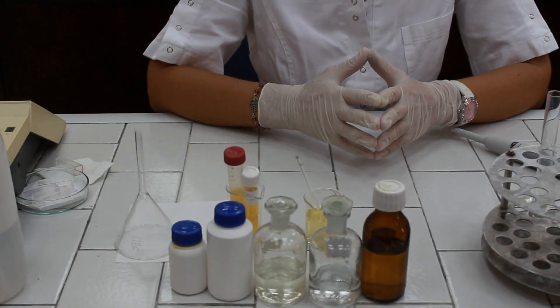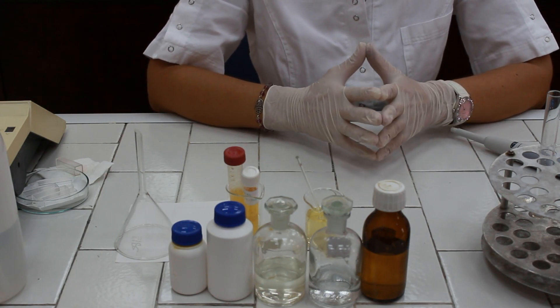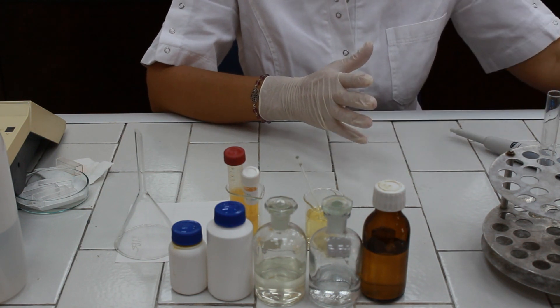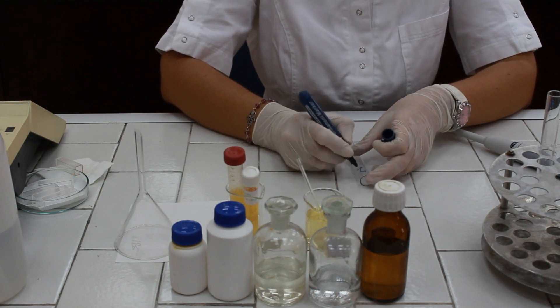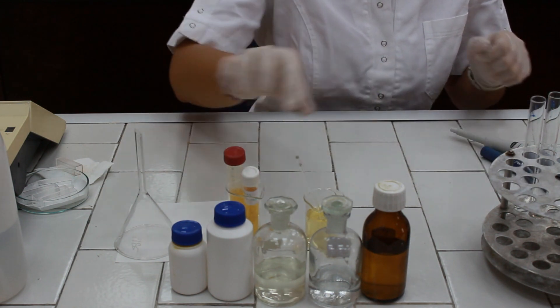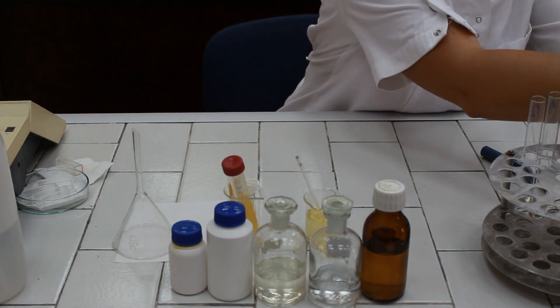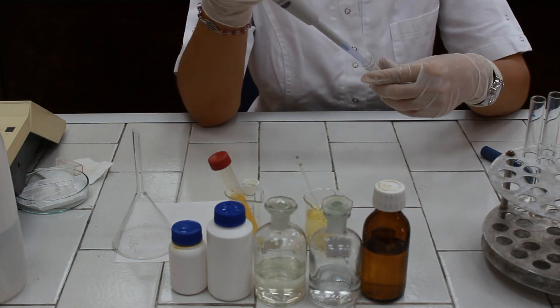Qualitative determination of indirect bilirubin in serum is provided by the so-called indirect diazo reaction, which belongs to the group of Van den Berg reactions. For this reaction we are going to take a test tube and mark it with number two. We are going to pipette 50 microliters of serum sample.